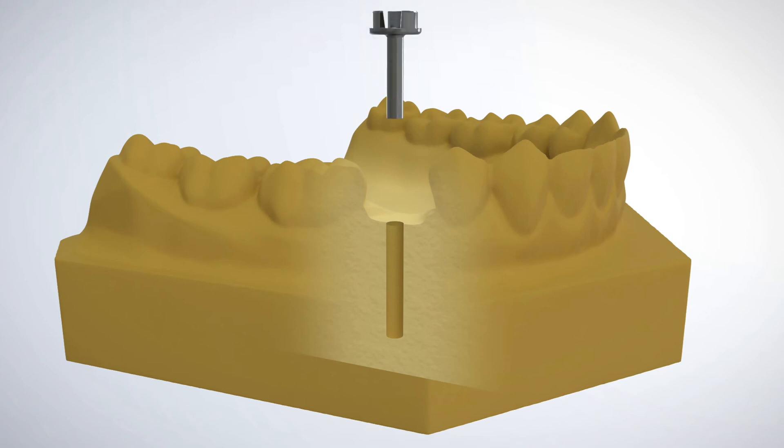The GRS locator pin, surgical ring, and protection cap complete the vacuum forming assembly.